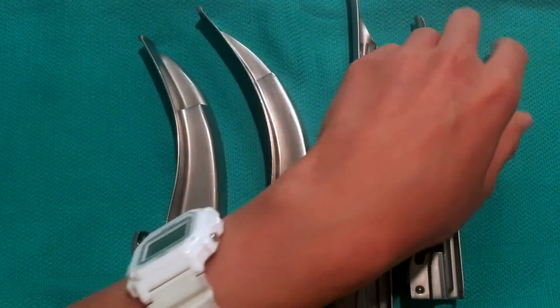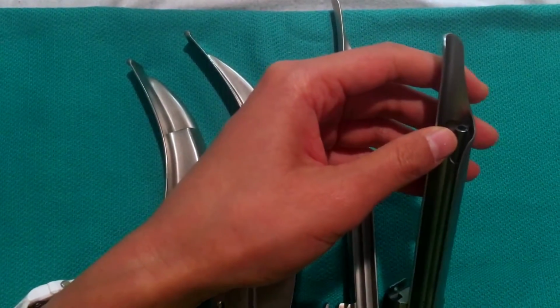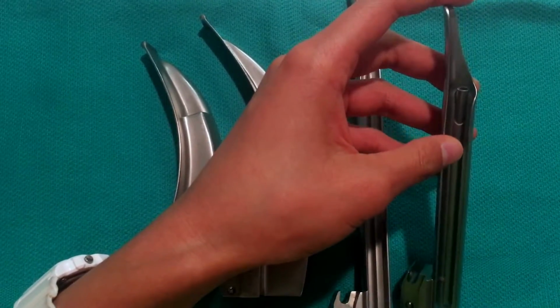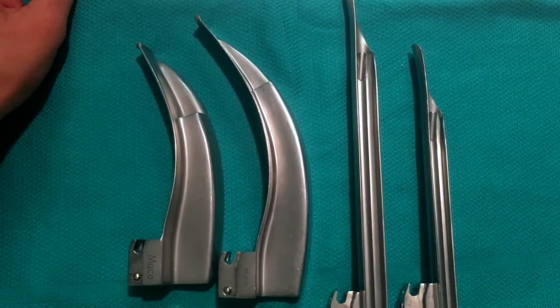A disadvantage is that, as you can see here, there's a smaller point of contact with the epiglottis, so there's higher risk of trauma to the epiglottis and unstable elevation. Also, the cross-section of the blade may obstruct the passage of the ET tube.